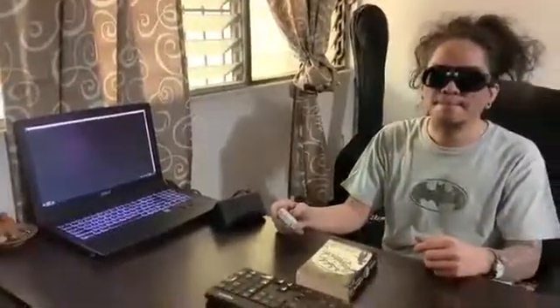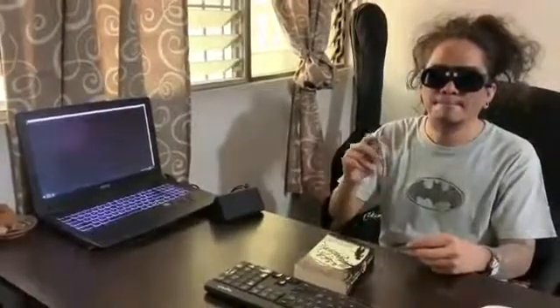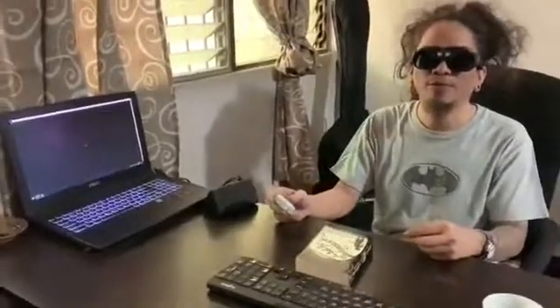Seeing with sound mode deactivated. Quick press to go through options. Hold press to select current option. Continuous navigation mode. This is continuous navigation mode — we're using open source machine learning models that we trained. Let's see how it works.